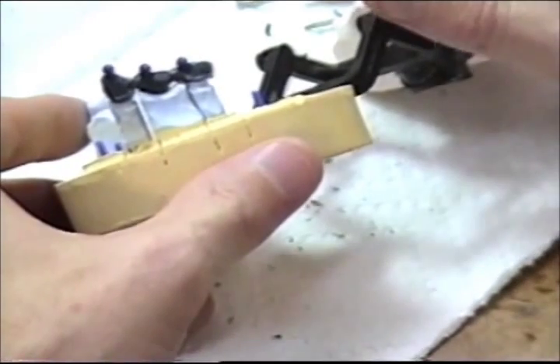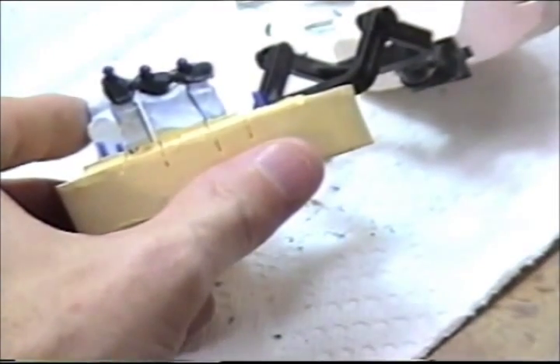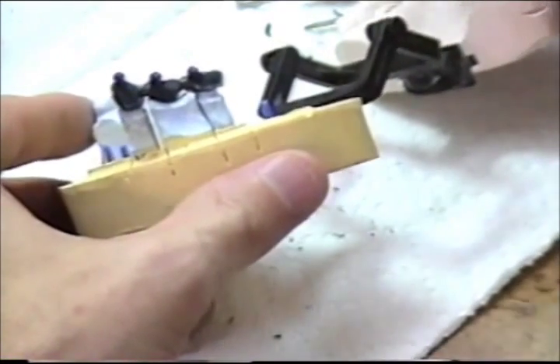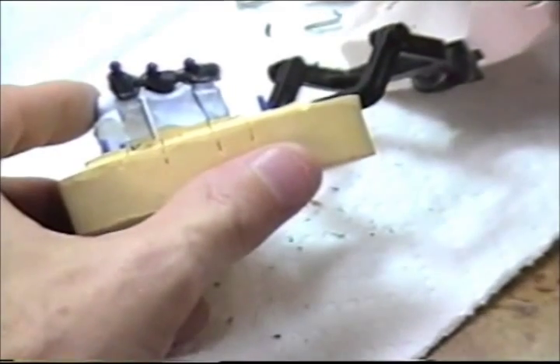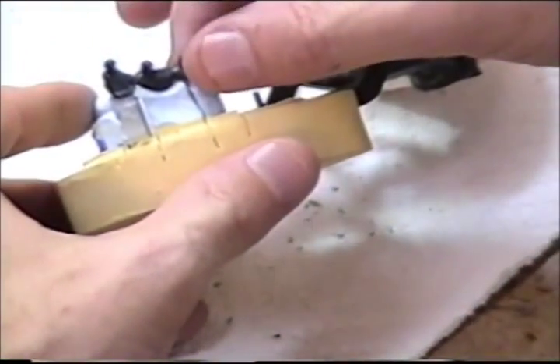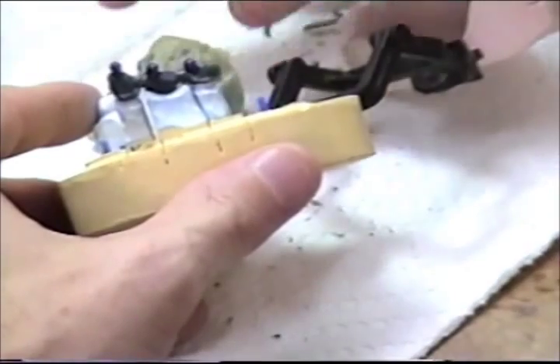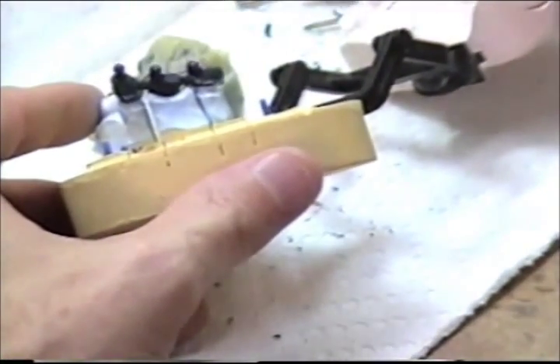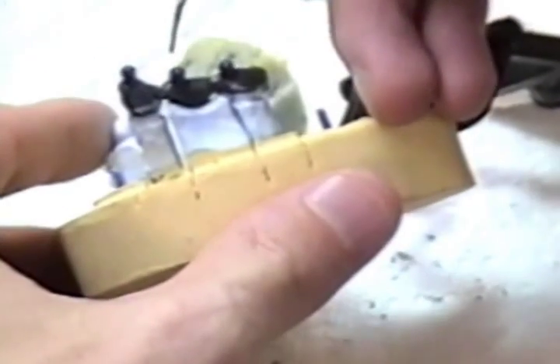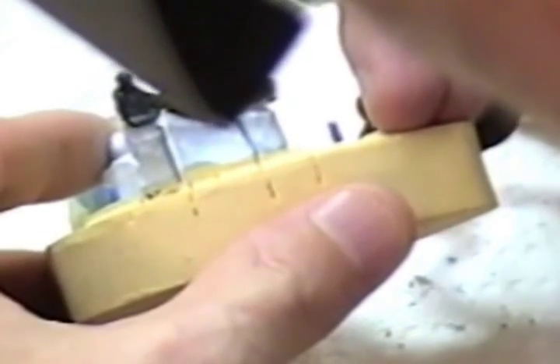I'm going to take a wax that does not break easily, a wax that has a very good memory - preferably a margin wax will be suitable. I'm just going to tack this contact or this joint area here in a couple of places. I'm not flowing the wax into the connector, just placing a couple of small little beads on the connector to hold it in place.